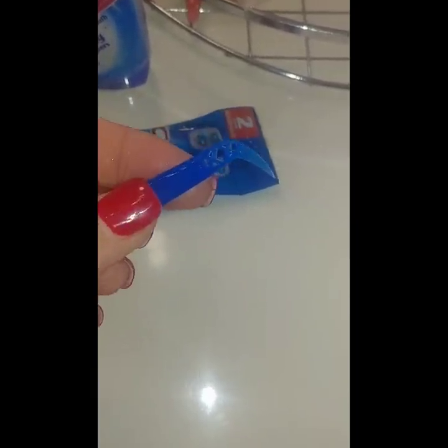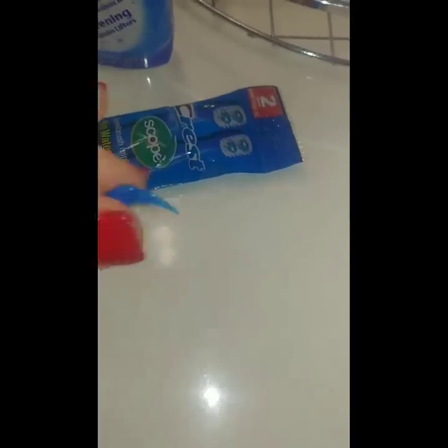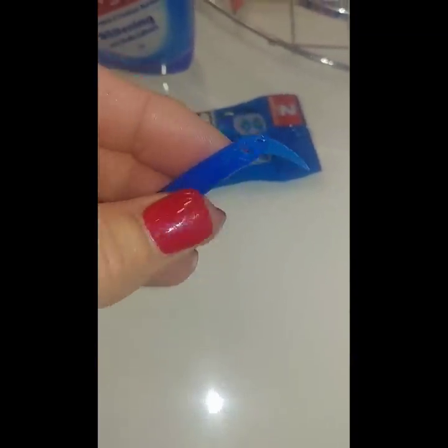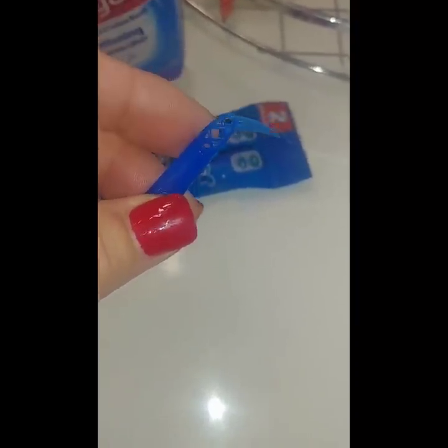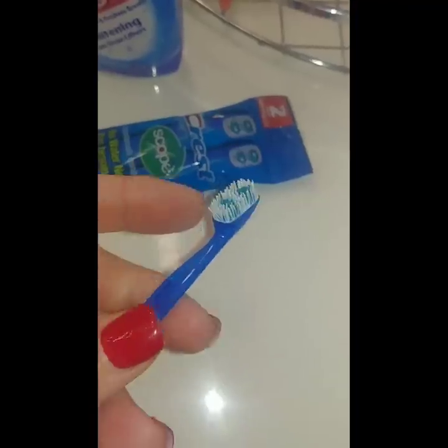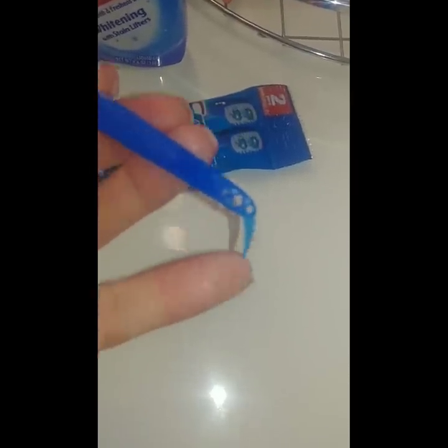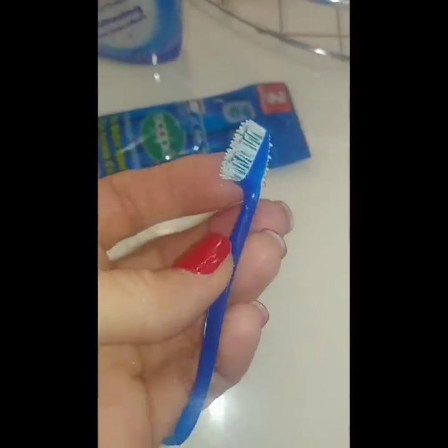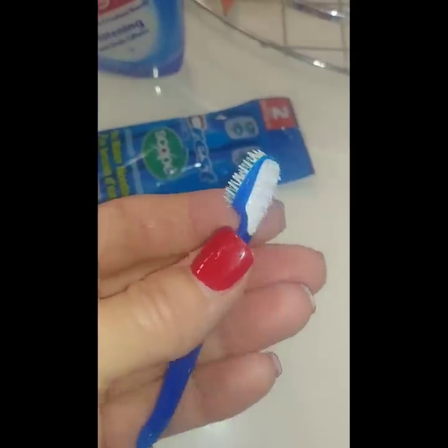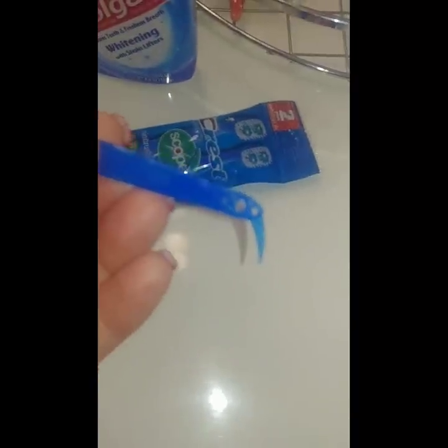You shouldn't have any plaque in your denture, but you want to gently grab the food with this little pick and just slide the food out. You're not going to want to grind into the denture or anything like that because you can loosen a tooth in there. Just lightly grab the food or particle you're trying to get, and if it doesn't come out within a couple of slides, just wait till you get home or try to swish with some water to see if that loosens it up. If it's really in there, you don't want to accidentally get the tooth out with the pick. But in my opinion, this is a great idea — it cleans your tongue, cleans your teeth, freshens your breath, and you can get food particles out with it.